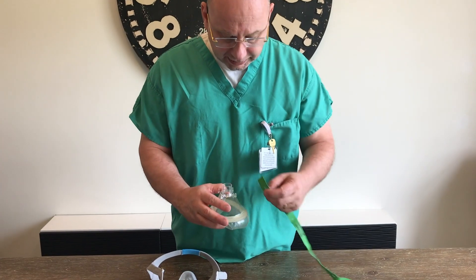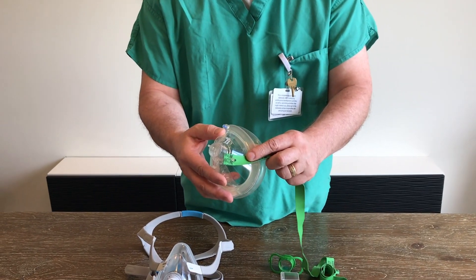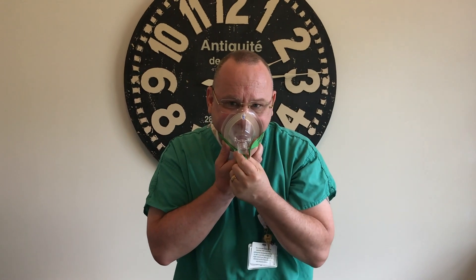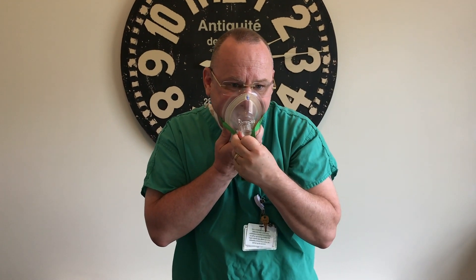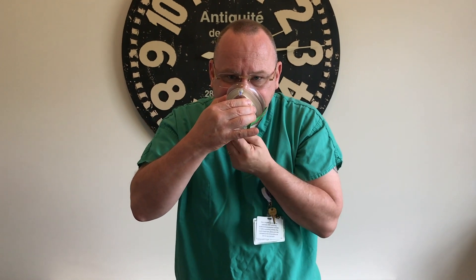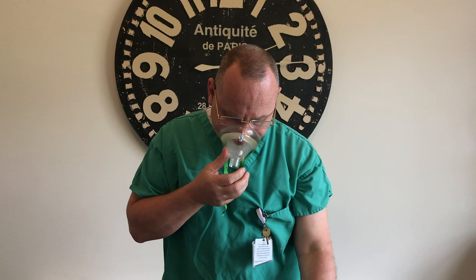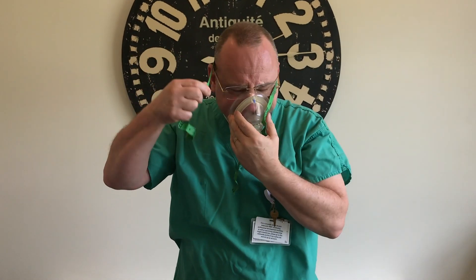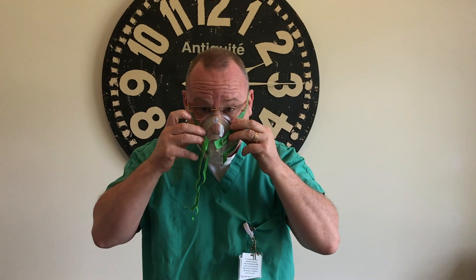So first what I do is I put it on the bottom spike like this, and then I put it on my face. I keep it on the bottom and you want to pull it nice and tight, and you want to make sure you have your hole on there. Just on the bottom spikes. Then you use your second one and you do it on the top spikes. Nice and tight over the top of your ears, high on the head — you pull it down and this one goes to the top spike. Adjust it on your head, adjust your straps because you're outside the room still and you still aren't protected. Put your hand over it to check to make sure you have a really good seal. Excellent seal.